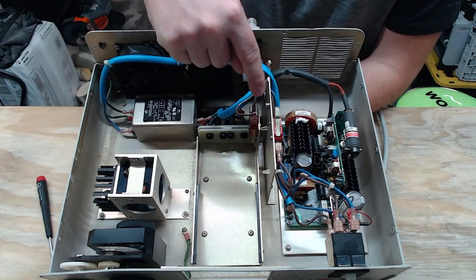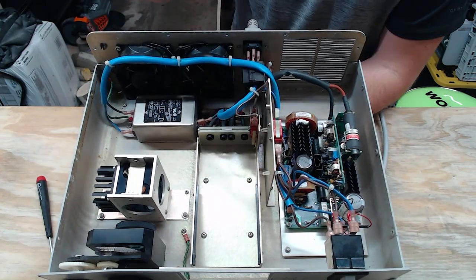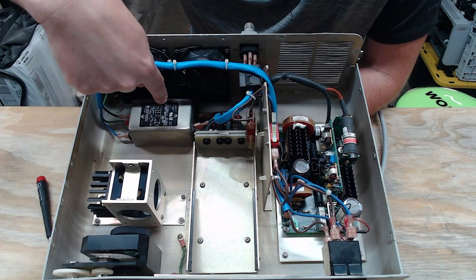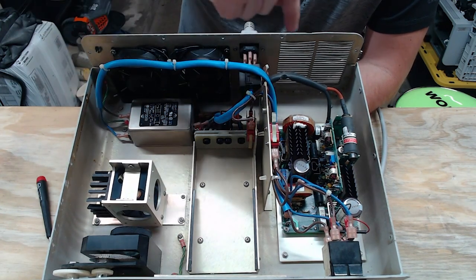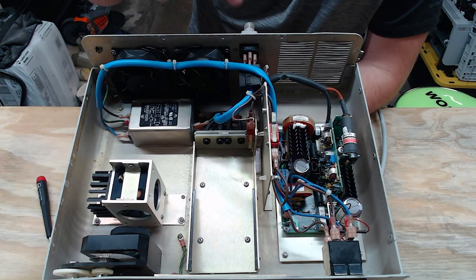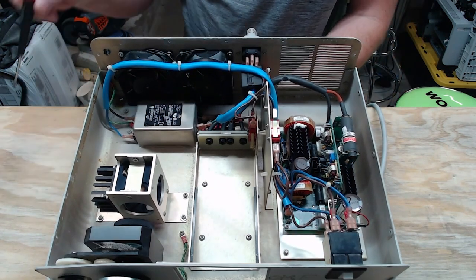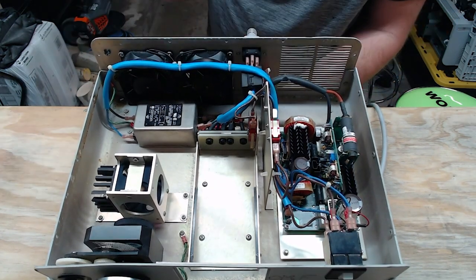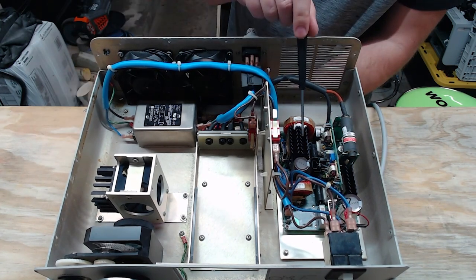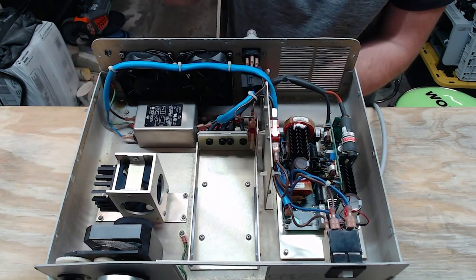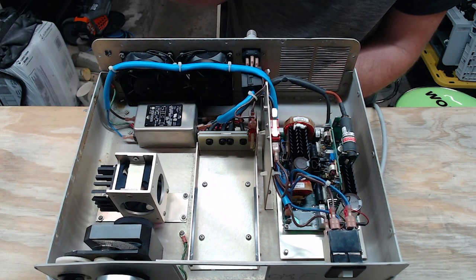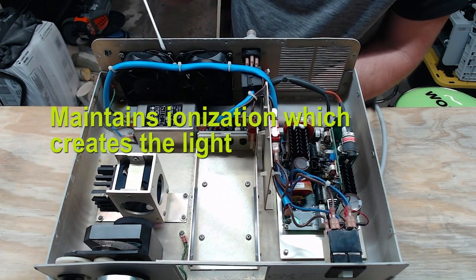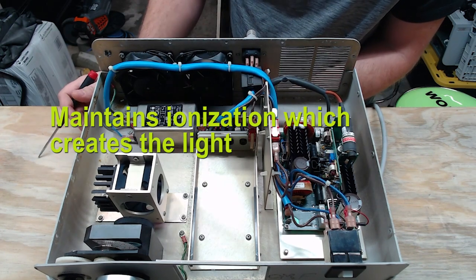And even on this one right here, I can see that the interlock is slightly bent, which means it's possible it's not going to detect the bulb as well as it could. But anyway, here we are. As the power comes in, it goes past the interlocks. It's going to go through the EMI filter and then it's going to come back here to the power supply where you have a high voltage side over here and you have a low voltage side over here. Notice the low voltage has got the massive heat sinks on it because like I said, it's low voltage, high current, and that's what maintains the spark inside the bulb.